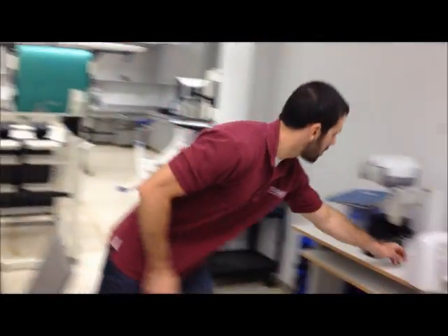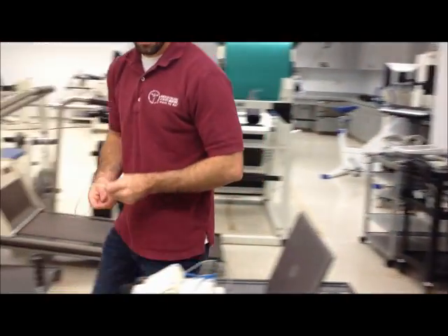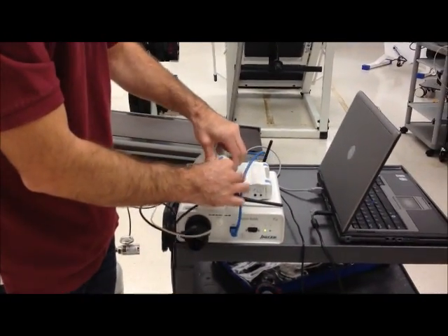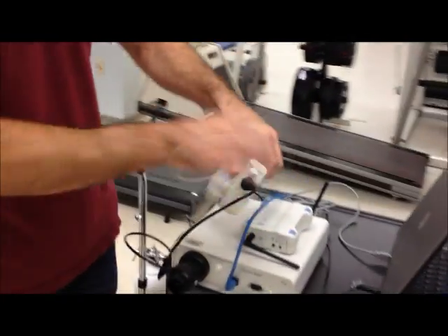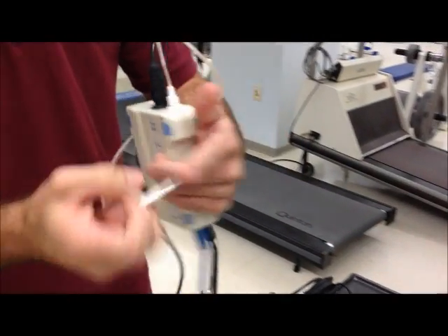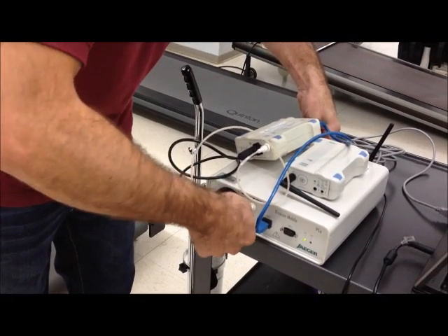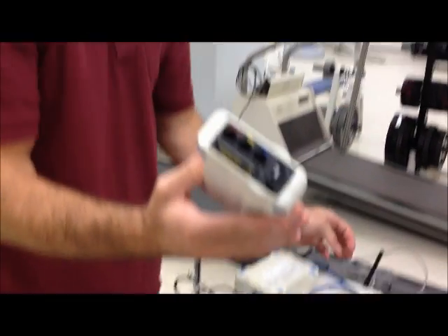The second piece you need to connect to the receiving unit is an air sample line. This blunt end goes on to the wireless unit and the pointy end goes into the receiving unit. You just put that in there nice and snug. This isn't connected to anything initially.